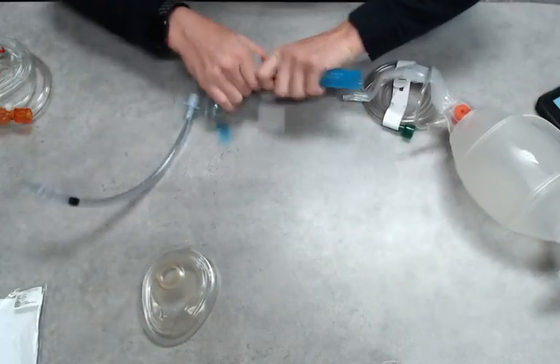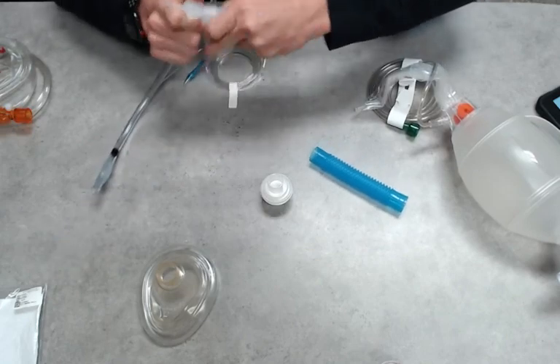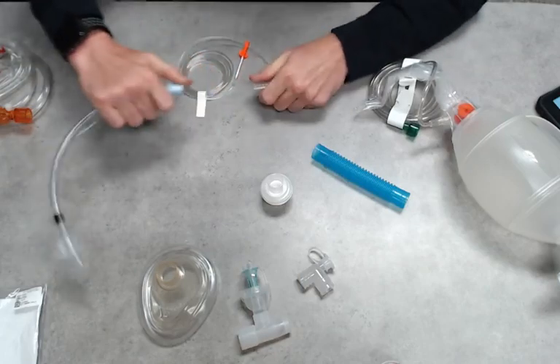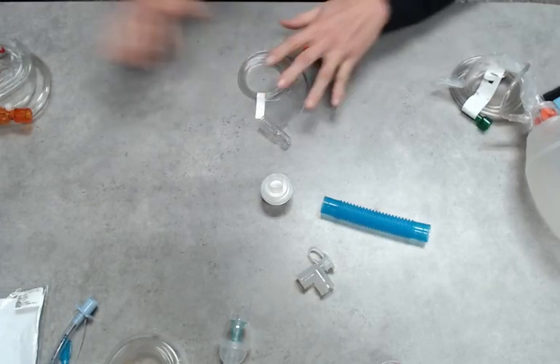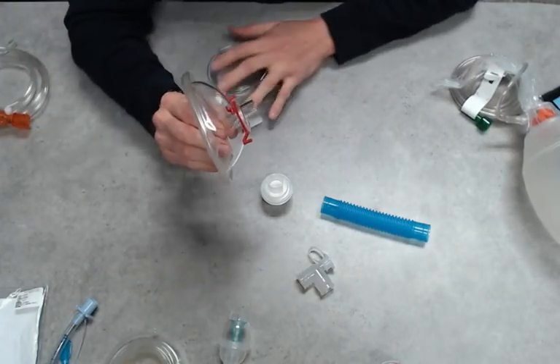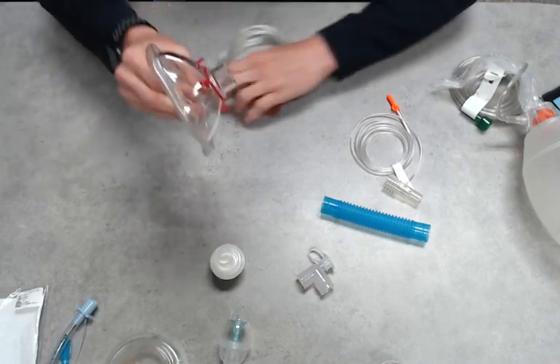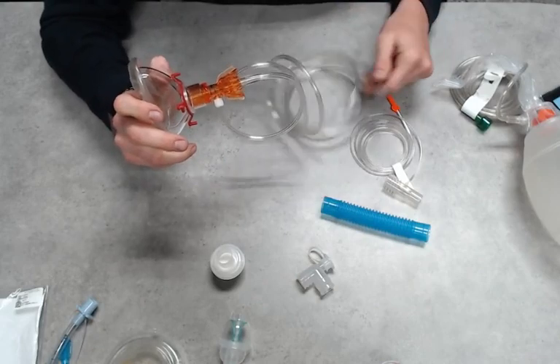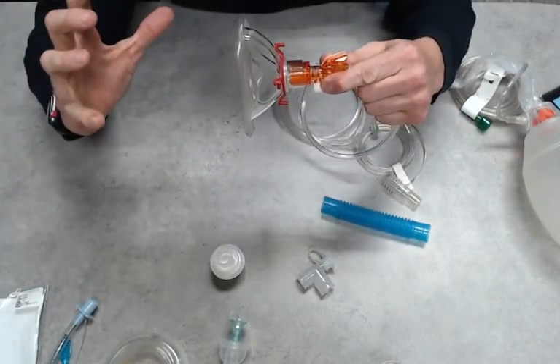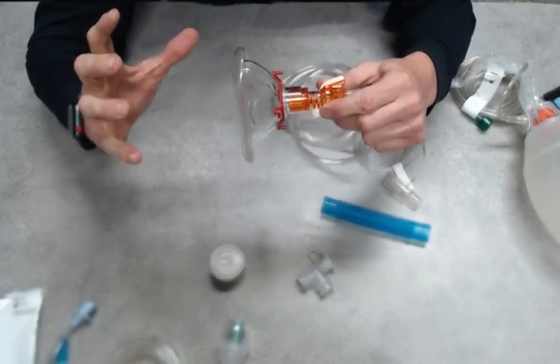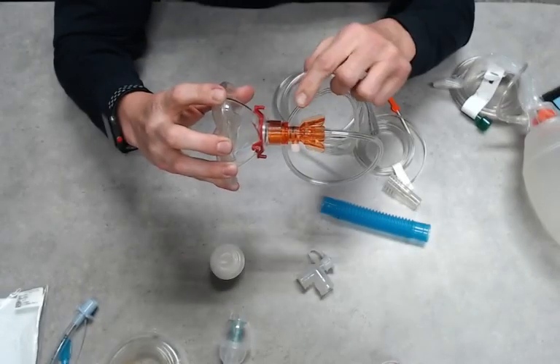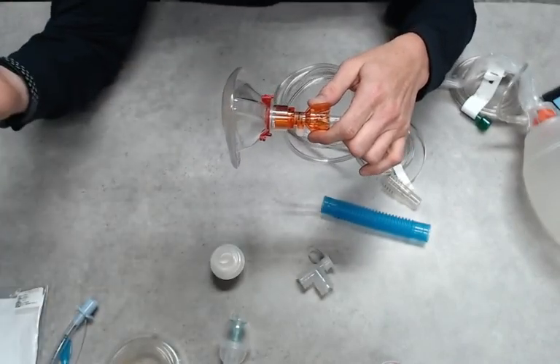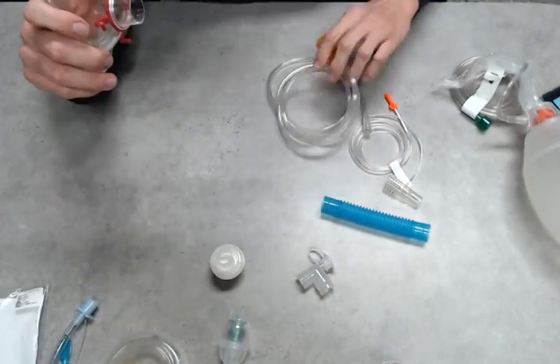All right, I'm going to go to the next setup. This one's going to be utilizing CPAP. So we're going to start with the patient's mask. Now typically, if we had a patient struggling to breathe and I'm just going to deliver CPAP, usually what I want to do is plug this in, hook it up to your O2 at the appropriate rate, and I'd have a partner sandwich that patient's head so we start delivering the treatment and the oxygen to the patient right away. However, if we're concerned about COVID, this would not be a good practice because we have no filter in place and now we're aerosolizing all of that content.